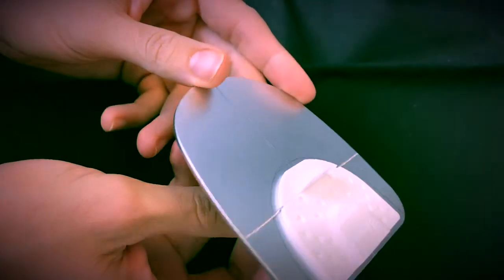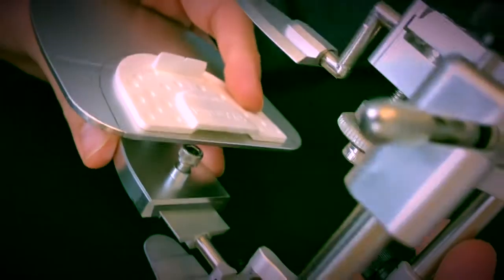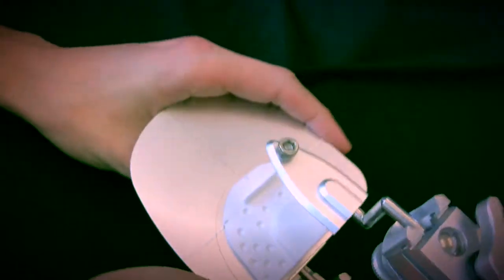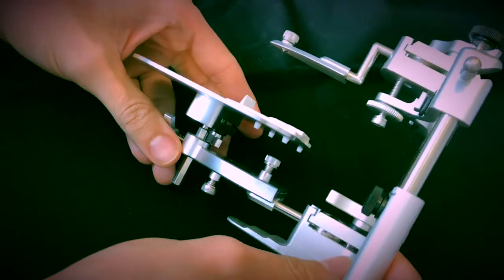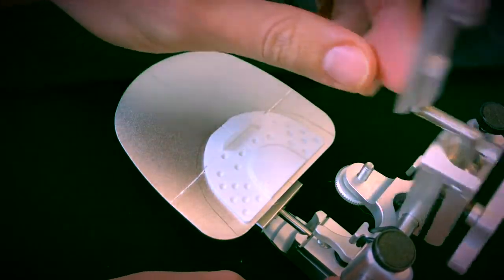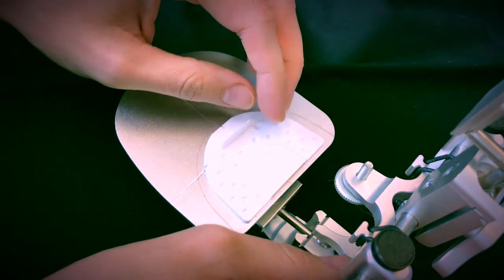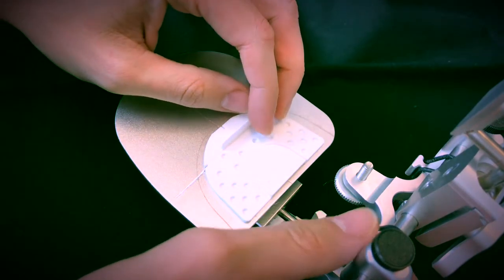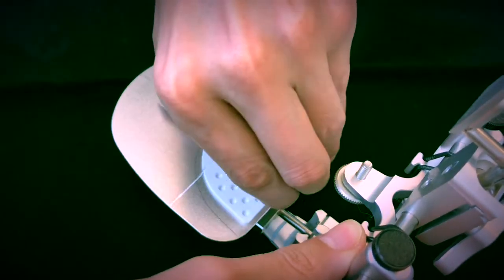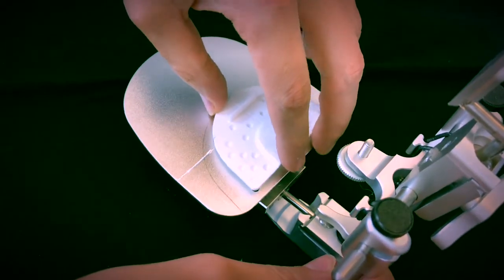Alright? So in that way I can use the same flat plane of the Enzo articulator and mount my cases right away, like so. So I have the articulator right there, and I can easily, when I take the occlusal record of the Dentofacial analyzer, I can basically use that to mount my case using the Enzo articulator.